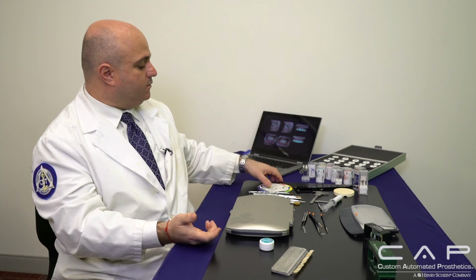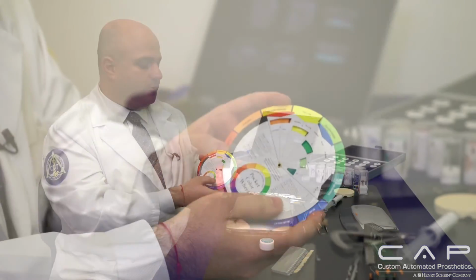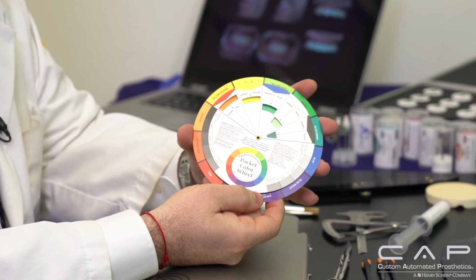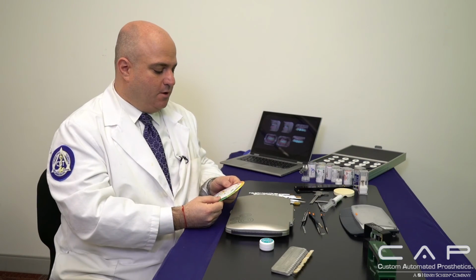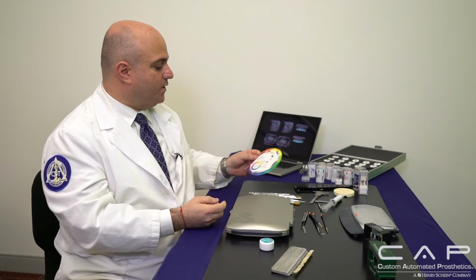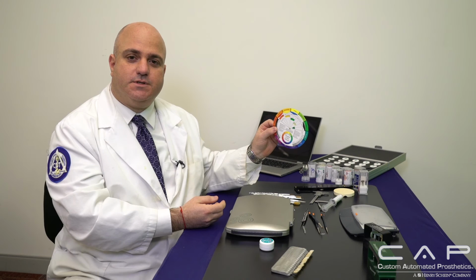Obviously, I always have the shade guide because you want to be able to match the proper shade with these different zirconias and different monolithic. Some are skewed in one way or another, whether it's through value or chroma. So you want to be able to control that. I also have as a reference oftentimes a color wheel. Although we know what we need to do to tone down chroma or increase chroma and so on, it's just a nice reference after a long day if you just want to verify where things are and if you're going in the right direction. It's something really inexpensive at an art store, and it helps not only yourself as a dental technician, but also the technicians in the laboratory figure it out.